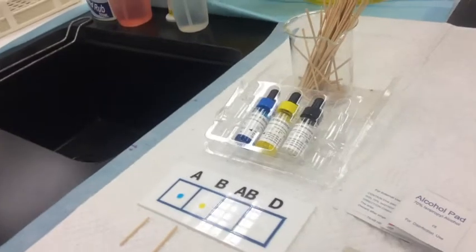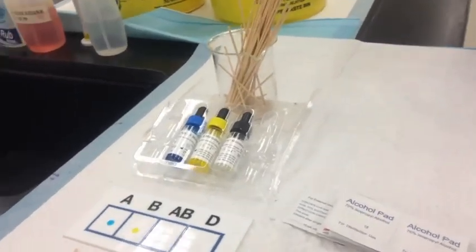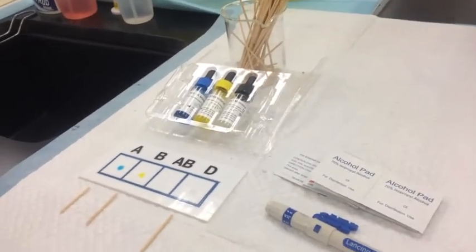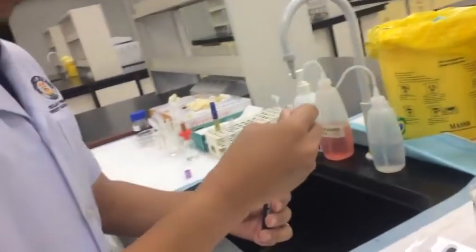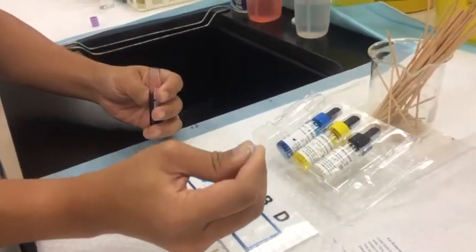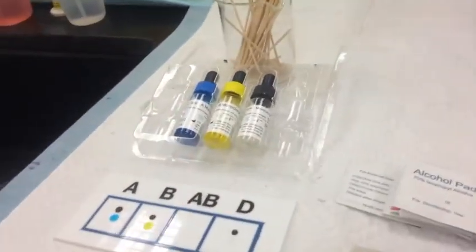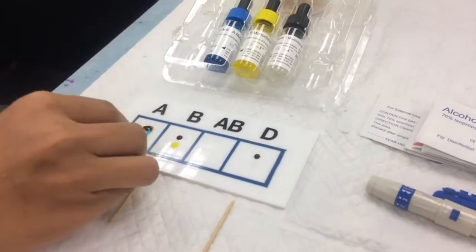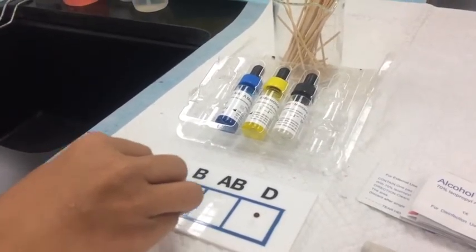We take the sample of blood and apply it onto these anti-sera — anti-A, anti-B and anti-D — and mix it up with the help of sticks, allowing the antigen-antibody reaction to take place. We take the sample of blood and apply it using the dropper. Then we place the drop of blood next to the material. You can use the sticks to mix it up, and there should be no cross-contamination at this stage. Once we have mixed it up, we keep the stick aside.